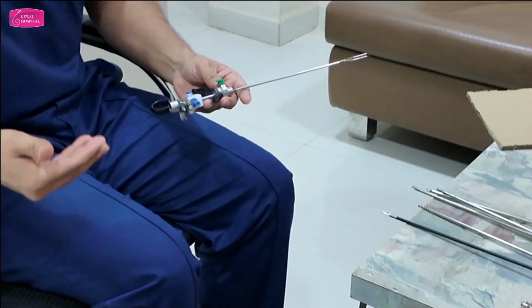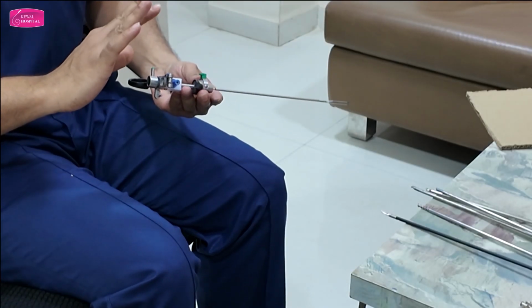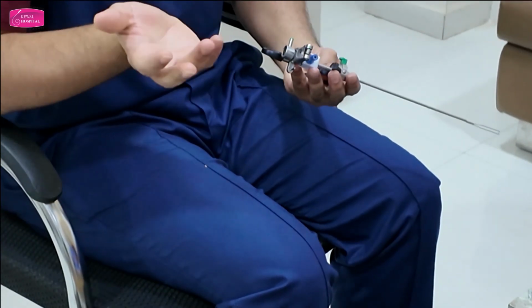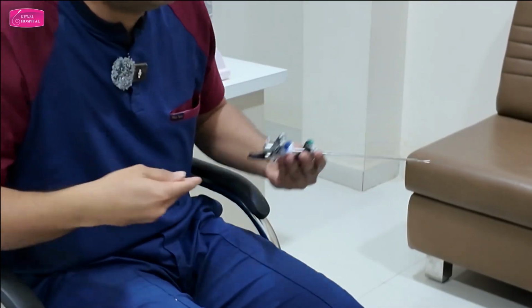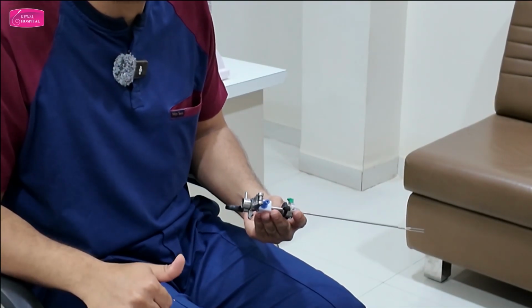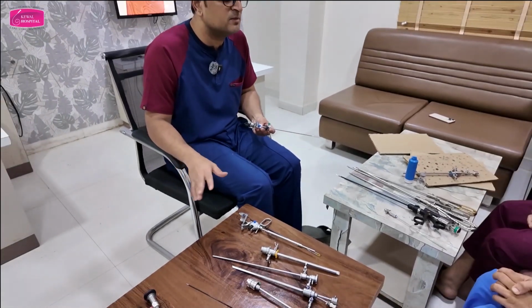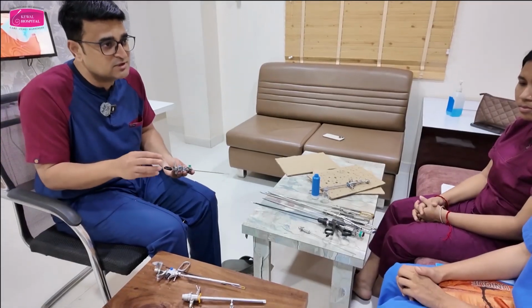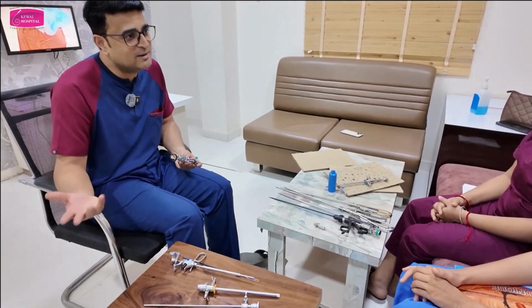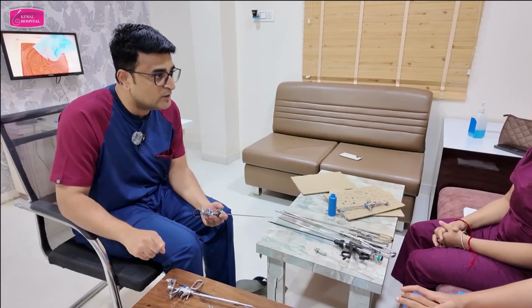I myself also don't do all these things because I have trained these people. They do it carefully for me because we are sometimes in a hurry. We want to finish the procedure fast. We want to see OPD. So we might end up doing it fast and damaging it. So that is why I don't handle all these things. We have dedicated people. So you should also train your people. Initially for 1 or 2 years you handle it yourself because you know its value. They might damage it, but once they are trained, let them handle it because they have time, you don't have that much time. Understood the problem, what can go wrong?